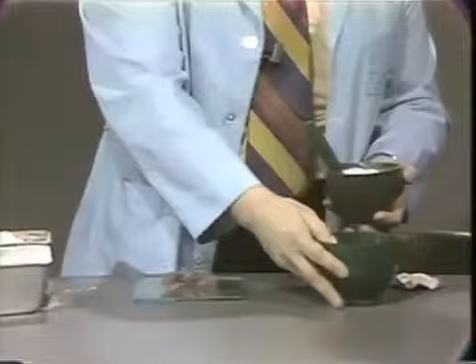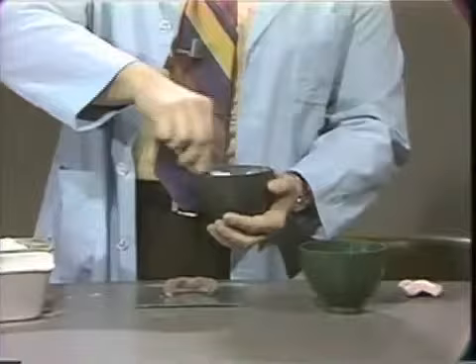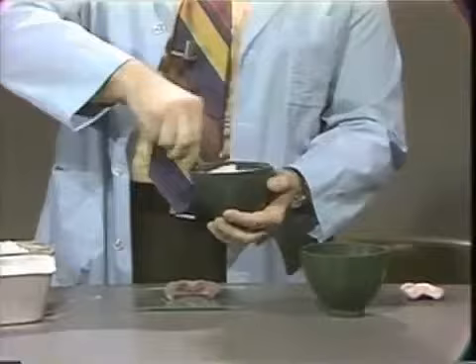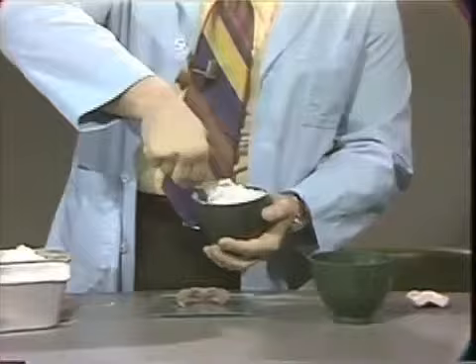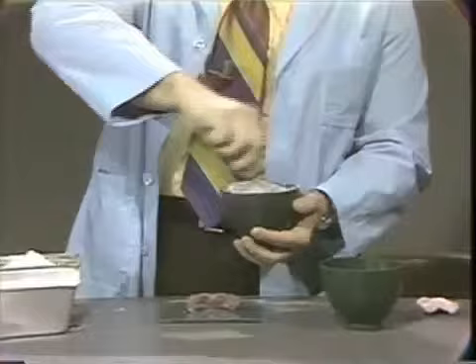I'm going to add some more water here. You have a lot of time to work with this — it's considerably different than when you just use impression plaster. I'm going to add a little more of both the impression plaster and the pumice. You do not have to hurry with this like you do if you're using just impression plaster. It's a little bit messy, but it's a very nice method for boxing these impressions.